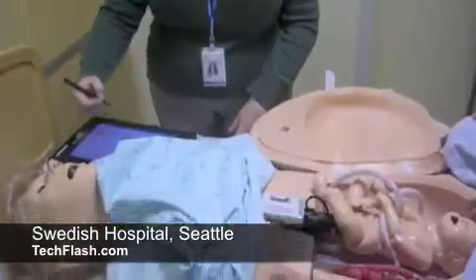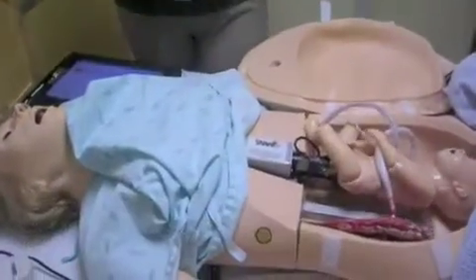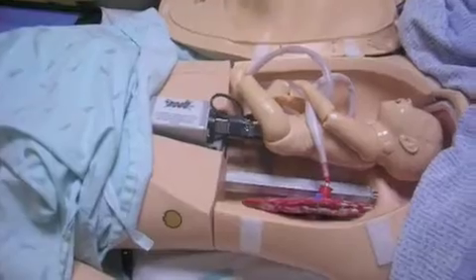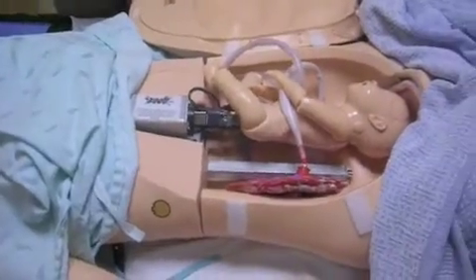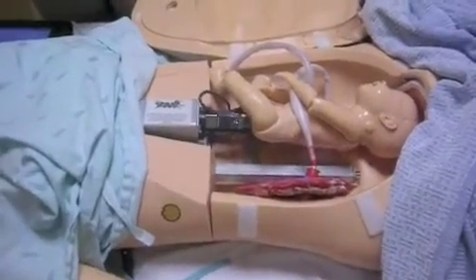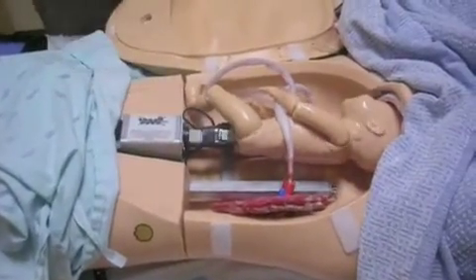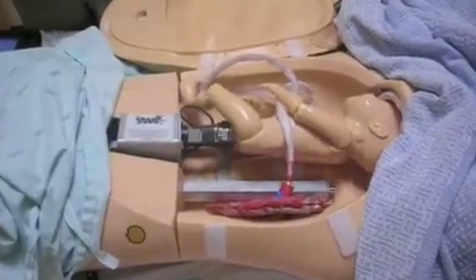I'm going to turn her on right now for you. This should take about two minutes. We're doing a very fast birth at the moment. But as you can see, the motor that's attached to Noelle is pushing the baby out.